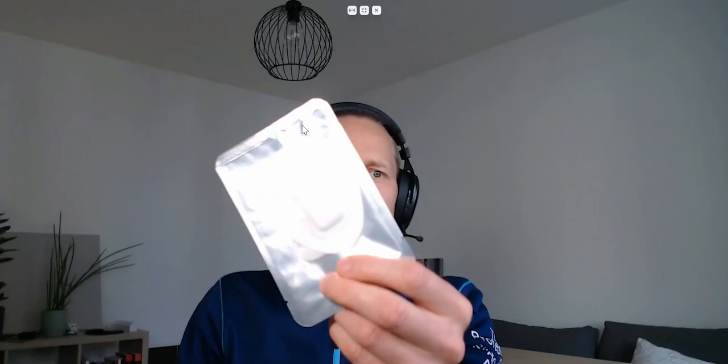It's transmitting the data via Bluetooth to a smartphone and then the smartphone is sending it to the cloud. The cloud can be checked with a smartphone, tablet or computer. Basically this device, we have this kind of patch attachment, individually packed attachment.